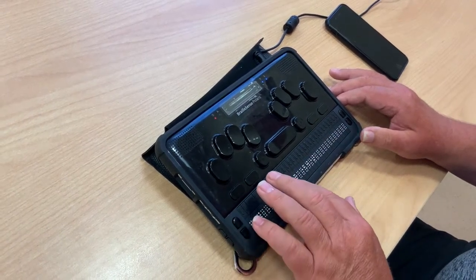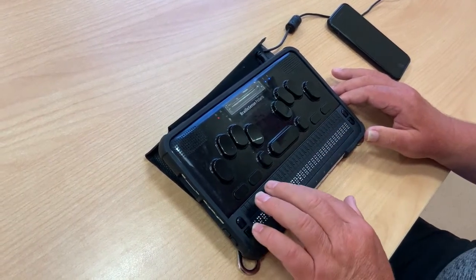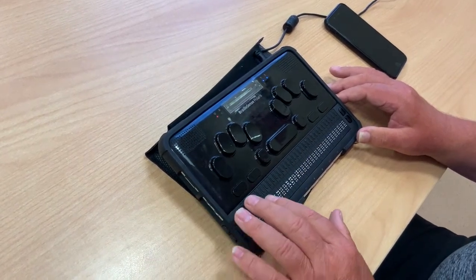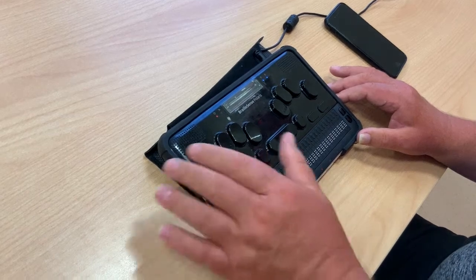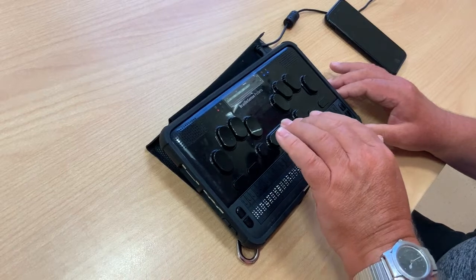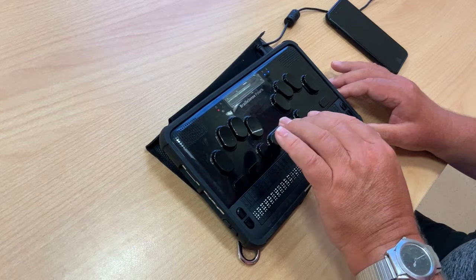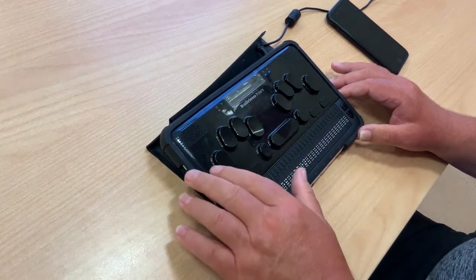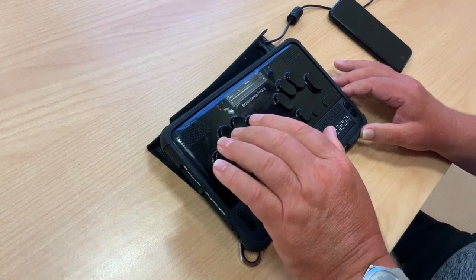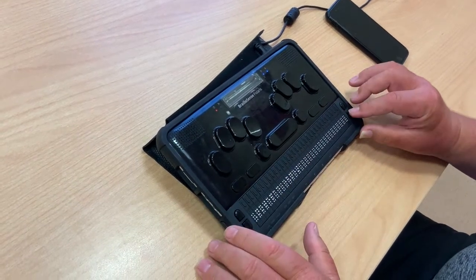I can read on the braille display that we've moved to Word Processor. Pressing space bar again: Notepad — another text editor. I can read it on the braille display and also hear it from the speech support. Continuing: Email, Media, Organizer, Web Tools, Extras and Utilities.